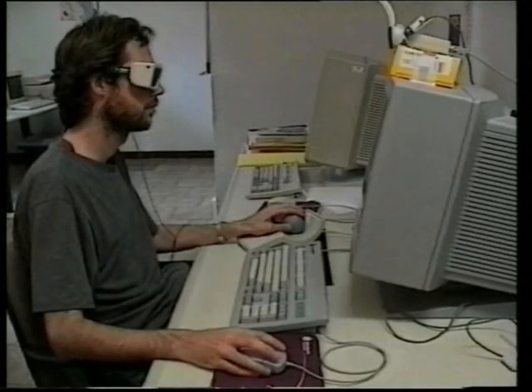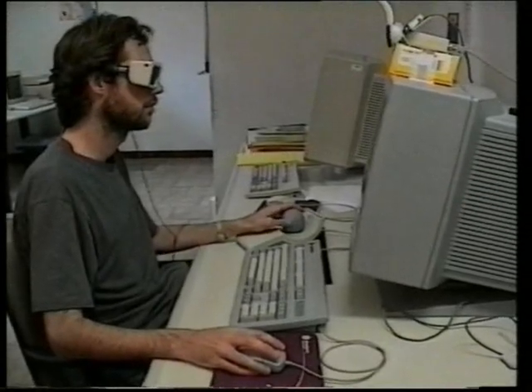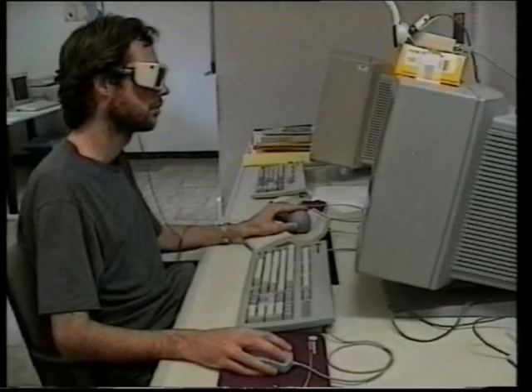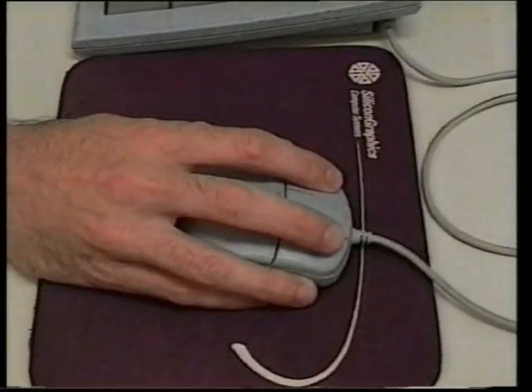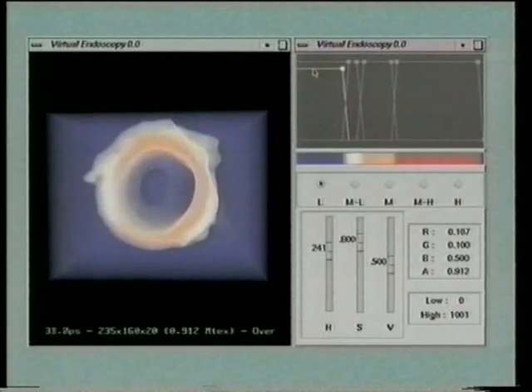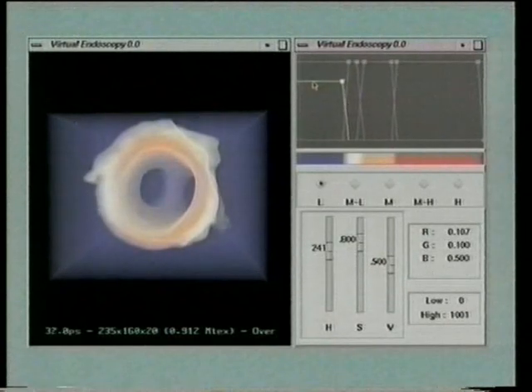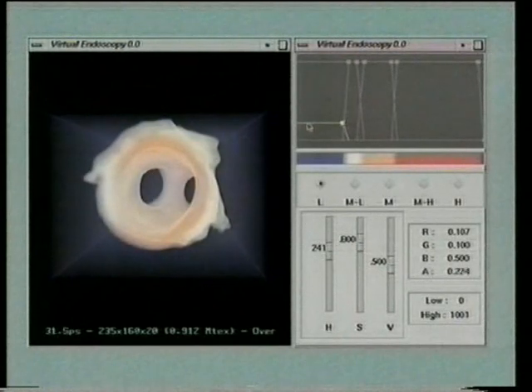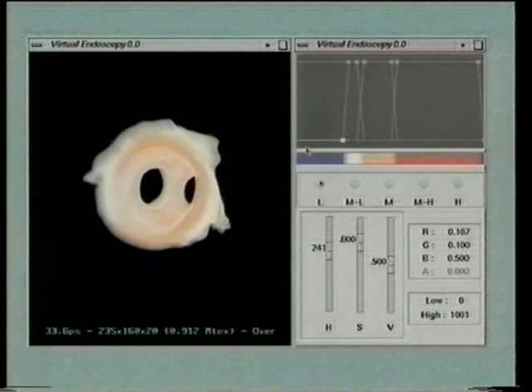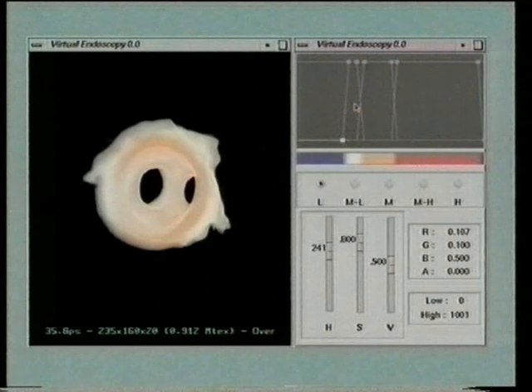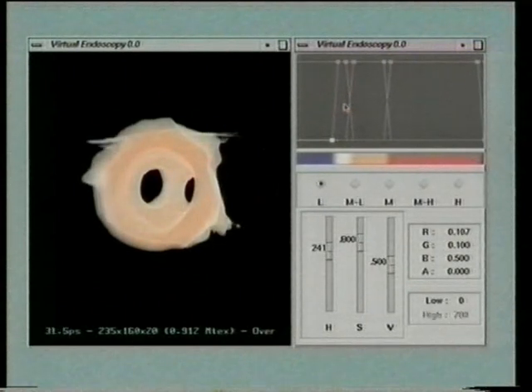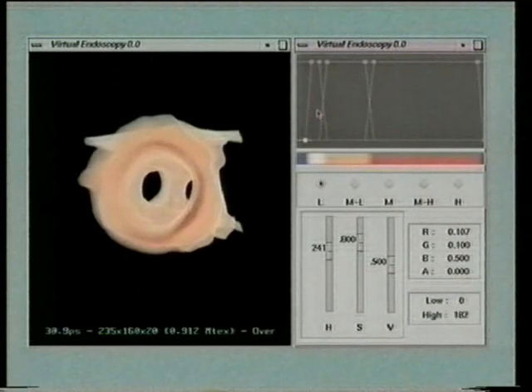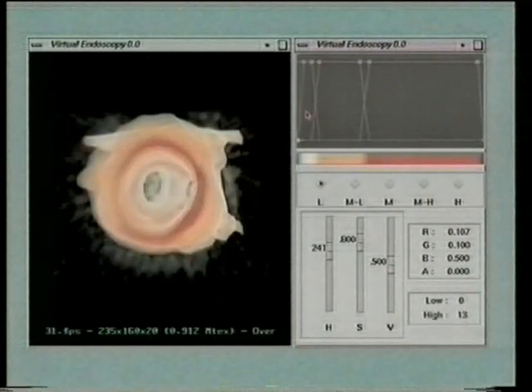Our aim is to merge the concepts of interactive direct volume rendering and virtual endoscopy in a tool for non-invasive visualization and analysis of diseased vessels. In our tool, a simple 2D GUI is used to map data values to emission and absorption coefficients for volume rendering. Various rendering effects can thus be achieved, including isosurfaces and opaque objects. The volume rendering approach is therefore more general than the surface visualization of current virtual endoscopy systems.